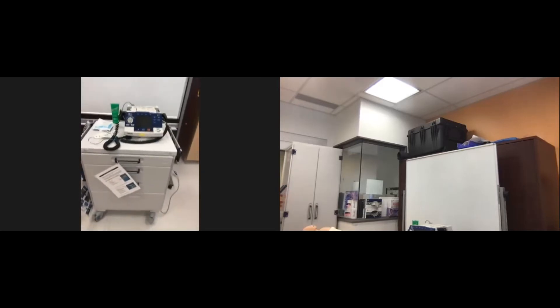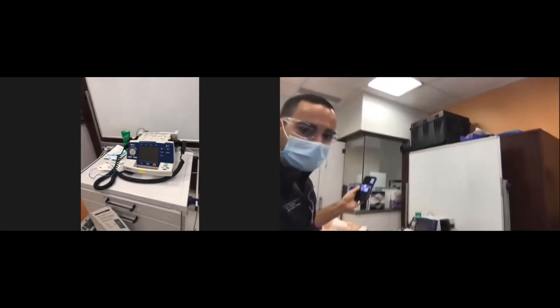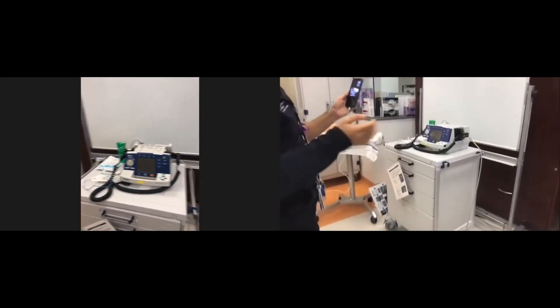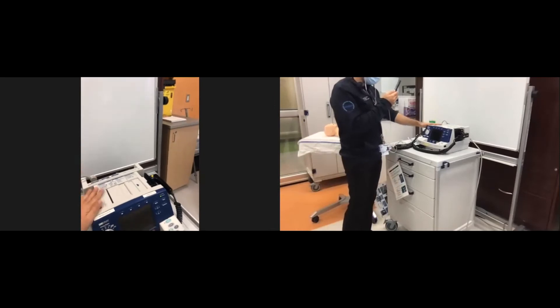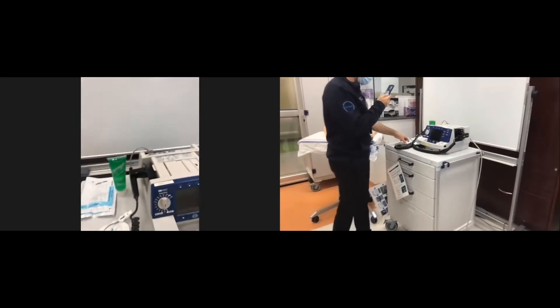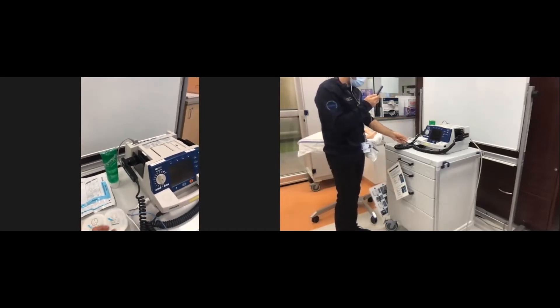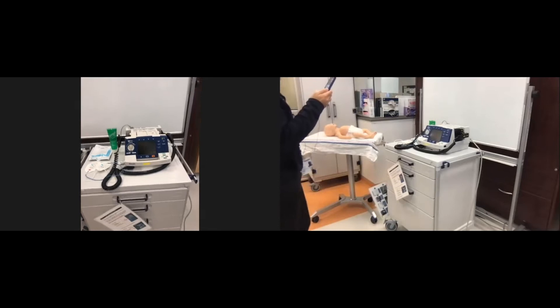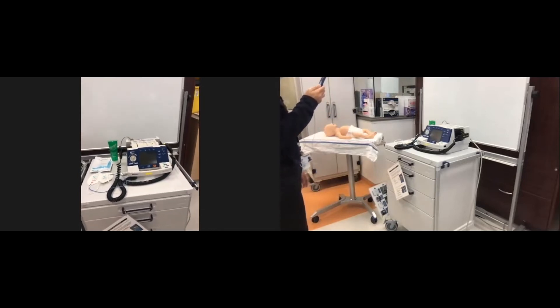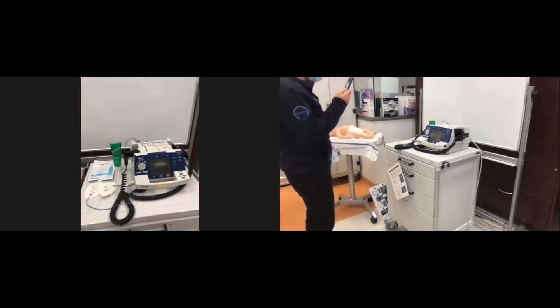The defibrillator looks like this. It comes within our unit with the machine on top, checked by the resuscitation nurses. Within the defibrillator, we will need to use the paddles or the pads — pads are stickers placed on the chest and back of the baby. Both can transmit electricity in the context of resuscitation, and each has advantages we will discuss.